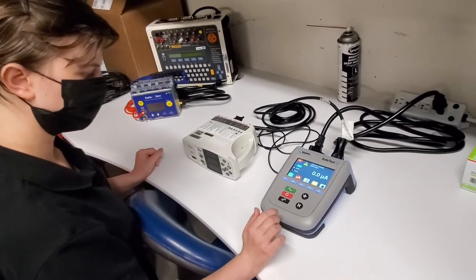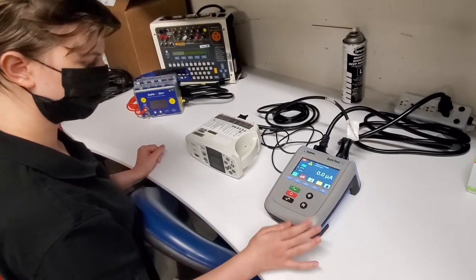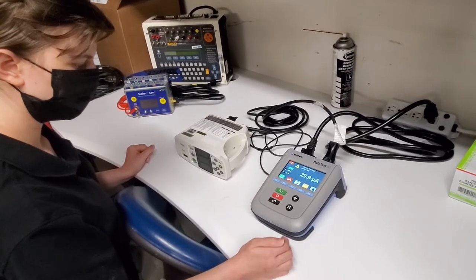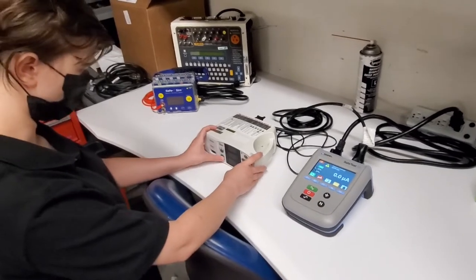Device turns on. It's in charging. Yep. Open the ground. Excellent. Go ahead and close the ground. There you go.